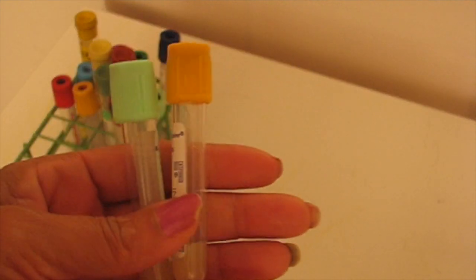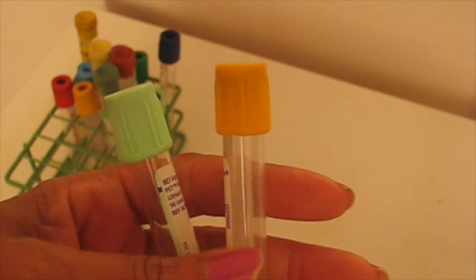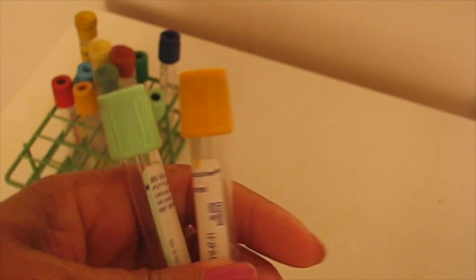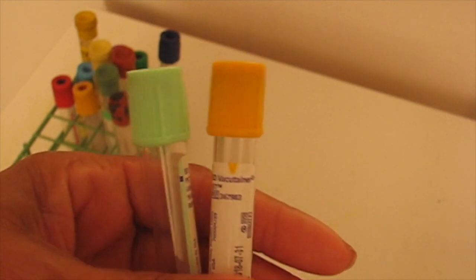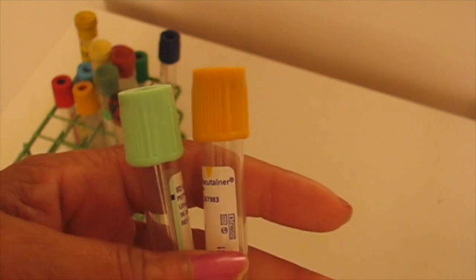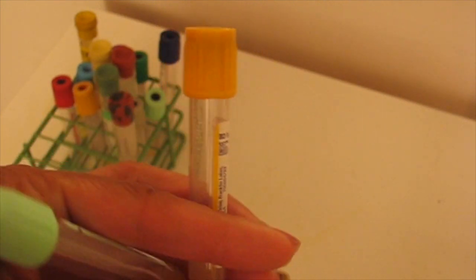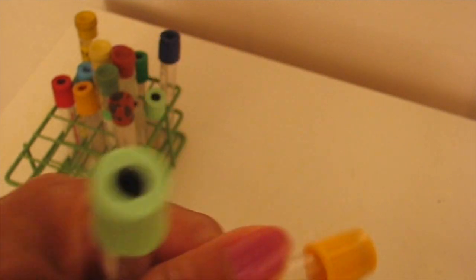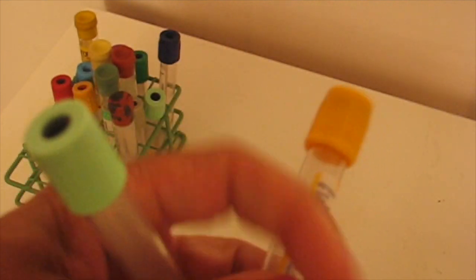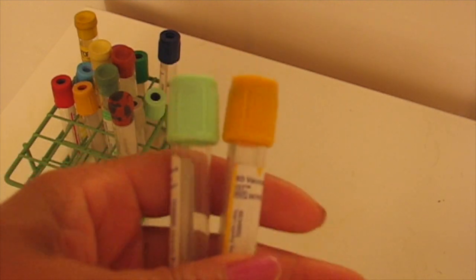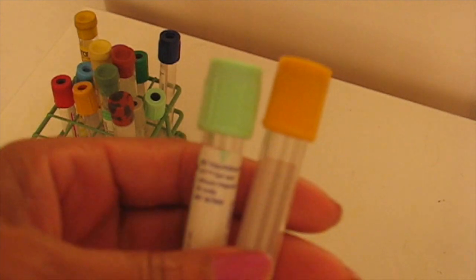As I've mentioned in the past, a green top and a gold top can mean the same thing in some places. Both of these tubes could go to chemistry. They may use the gold top instead of the green top, but they're running chemistries off of both.